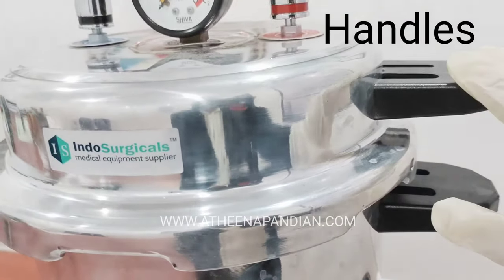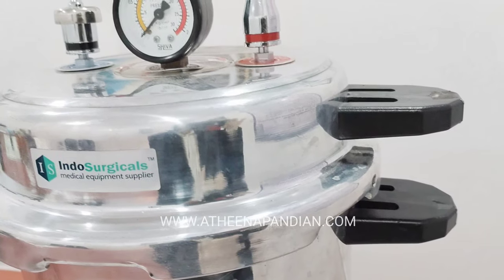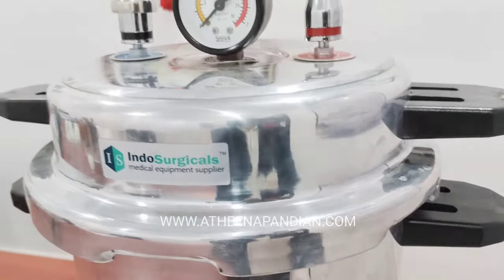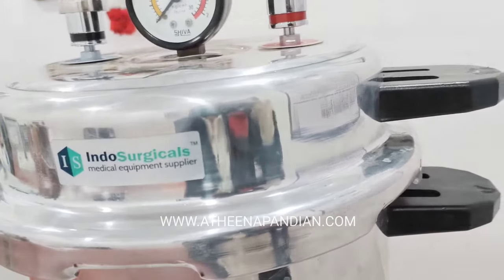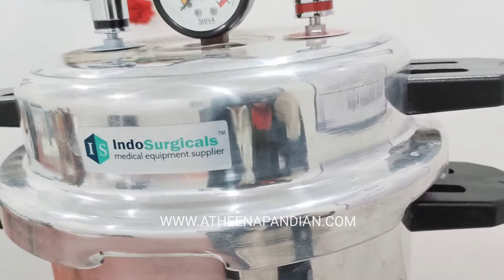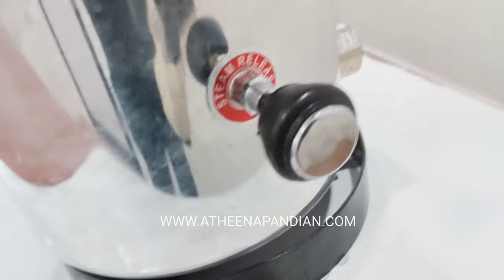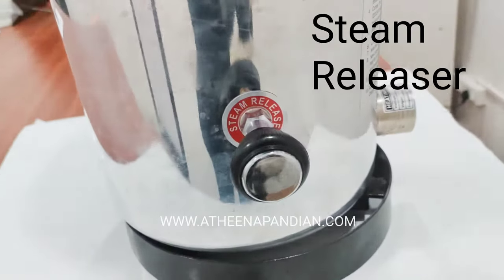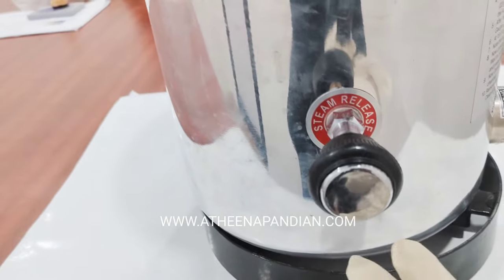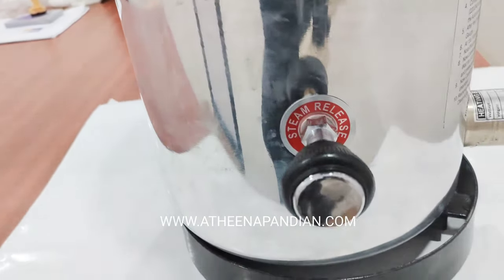These two are the handles used for the purpose of lifting the autoclave, as it is in portable form, and to open the cap from the chamber. There are 2 side handles. At its right side you can see a steam releaser. In addition to the 2 valves, you can use the steam releaser to release the steam from the inner chamber to outer space.